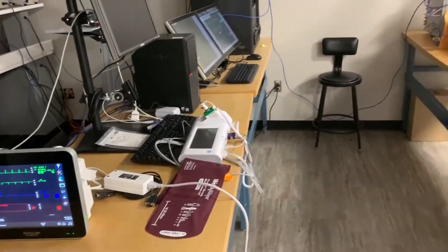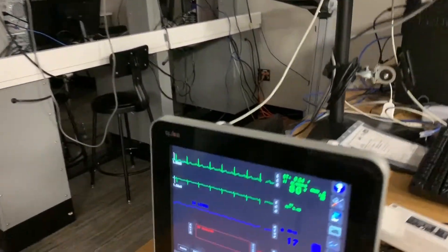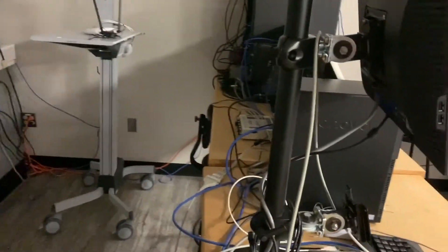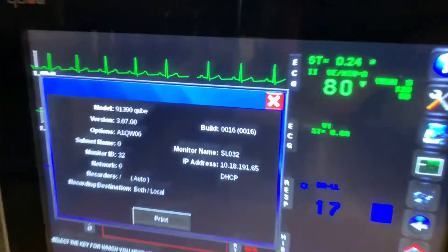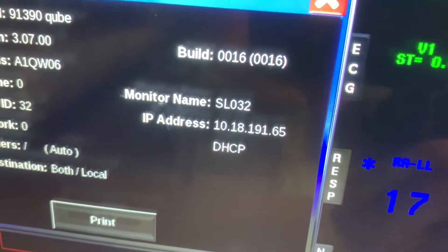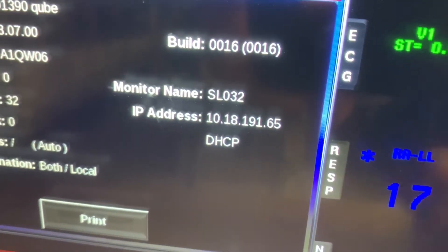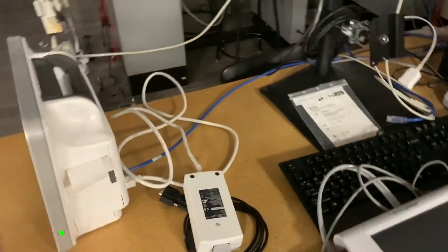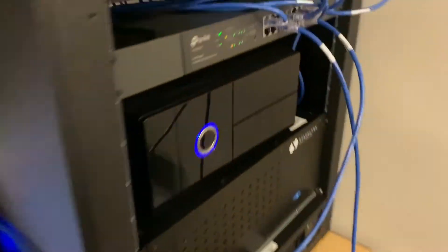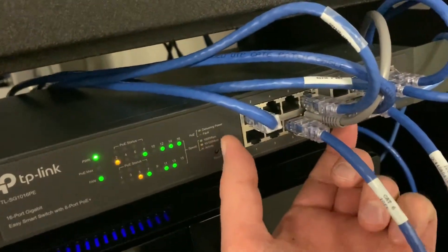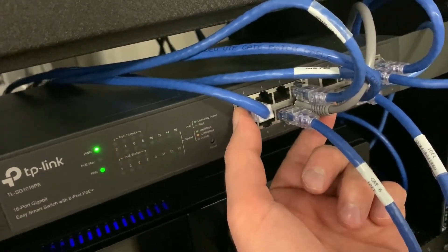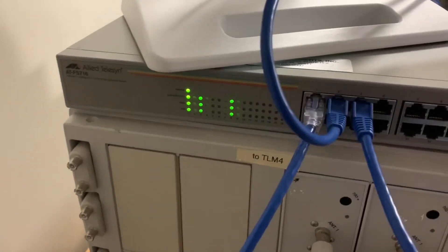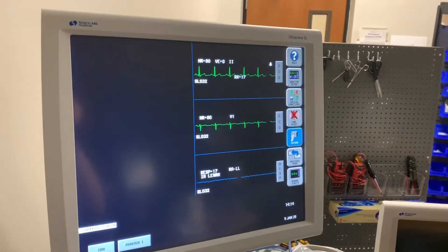The more realistic scenario is what we have set up on these two tables. This ECG here is a different ECG — it also has a simulator back here providing the trend information. If I click on there, you can see that's its current IP address and it's been obtained through DHCP. The information from this ECG is being sent through the network up to this switch, into this set of ports. These eight ports are defined as one VLAN for the ECGs, and from there it's being sent out to the central station, and also through another cable to this switch, which is then sent to other devices on this network, like this ECG here.